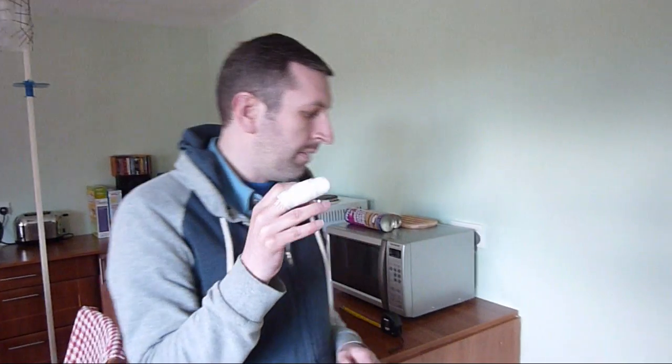Hi, Big Rob from SlepX here with a quick video about the error with the Stadiometer. Now it is quite small, a couple of millimetres, but I just want to show a video of me measuring on the Stadiometer and against the wall to see the slight difference. Because sometimes the Stadiometer gives a kind of false sense that you're comfortably above 5'8".